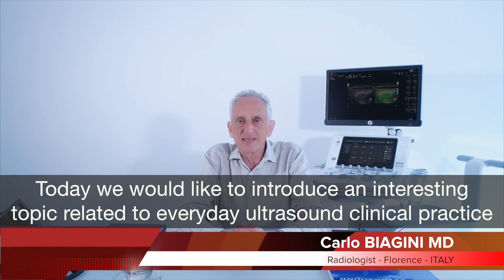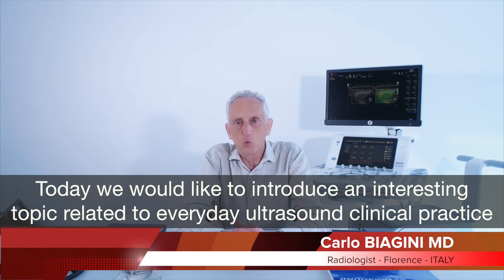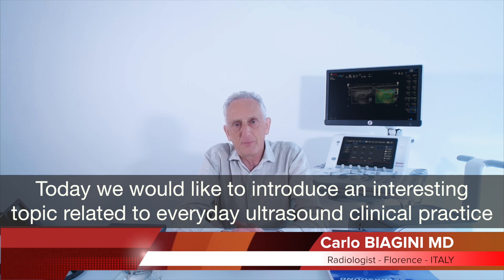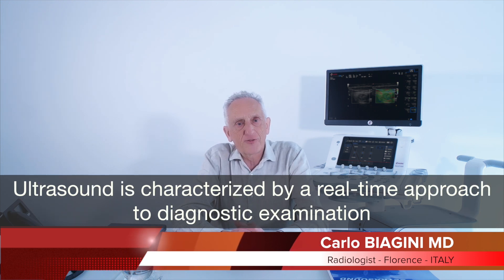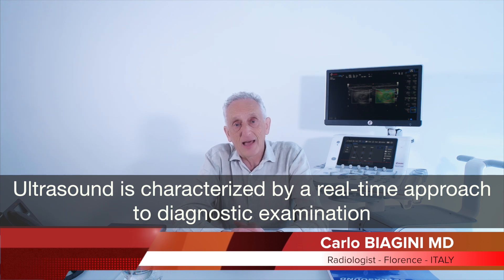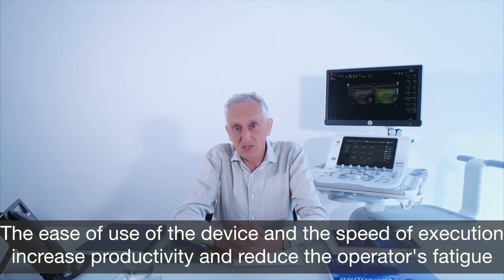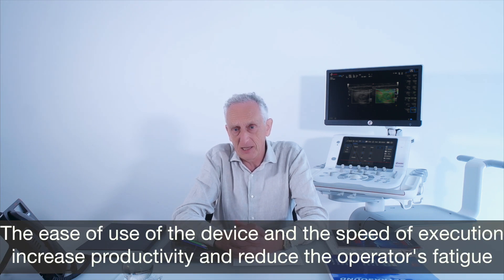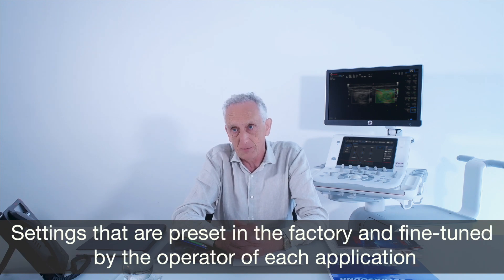Today, we'd like to introduce an interesting topic related to everyday ultrasound clinical practice. Ultrasound is characterized by a real-time approach to diagnostic examination. The ease of use of the device and the speed of execution increase productivity and reduce the operator's fatigue.